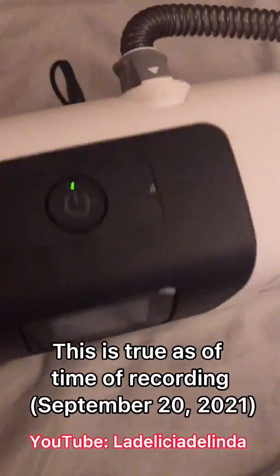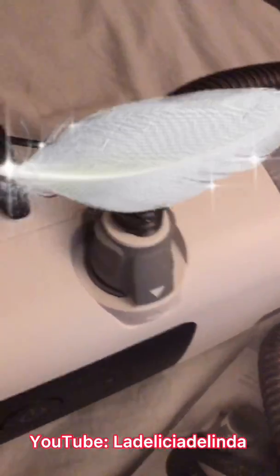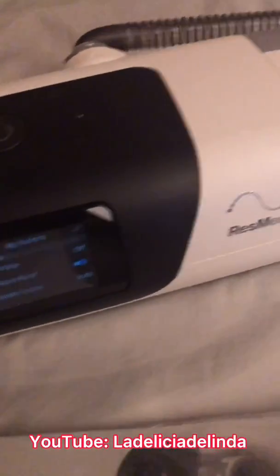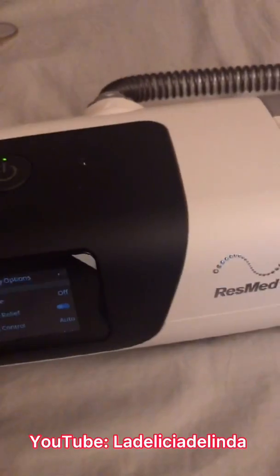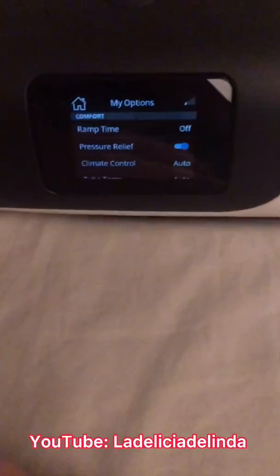When you buy the tubing, make sure you buy the 11 version — unfortunately it's not currently available for sale on the market. It's called the ClimateLineAir 11. To get that heated tubing you actually have to ask your distributor. I asked Apria and they said my doctor had to write a prescription for it, so my doctor wrote a prescription and Apria sent me the heated tubing. They also accidentally sent me the 10, which is why I have both.